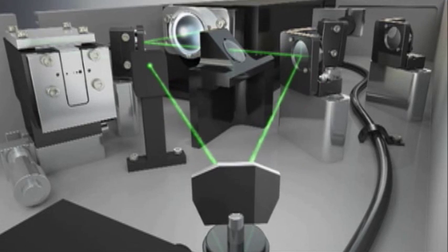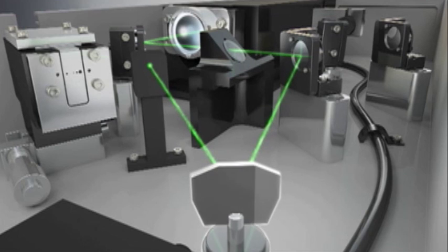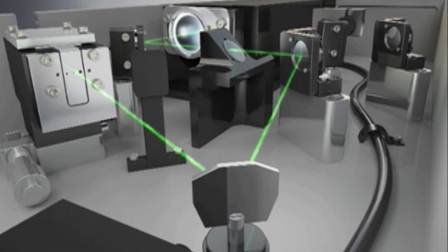PASCAL's laser fires a continuous beam at the first high-speed galvo, located in the laser console. A mirror on this galvo momentarily directs the beam into a fiber-optic cable to create a pulse.